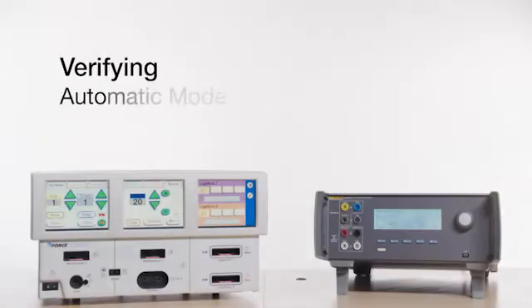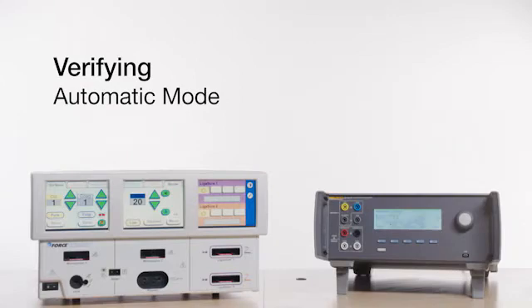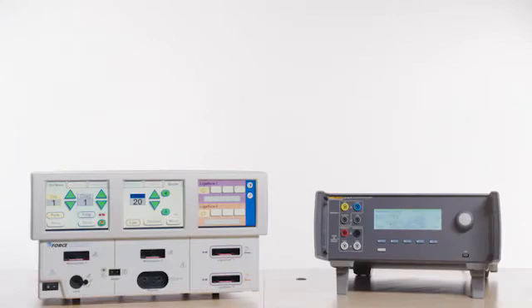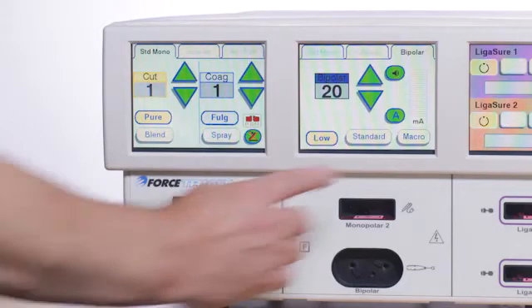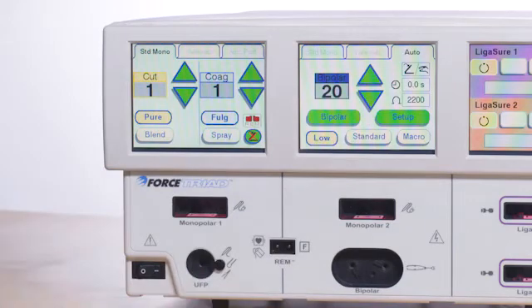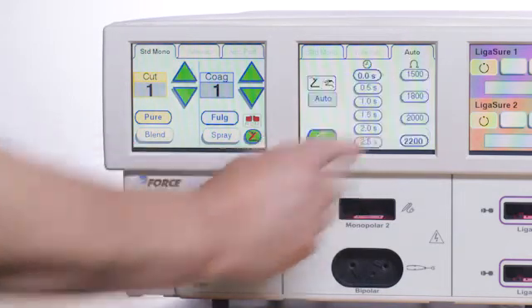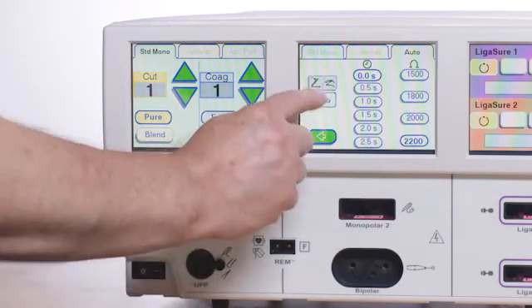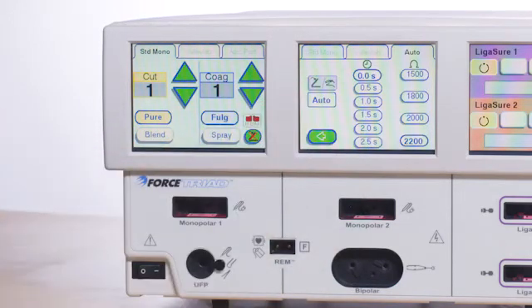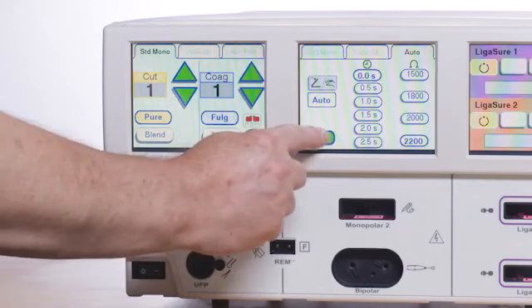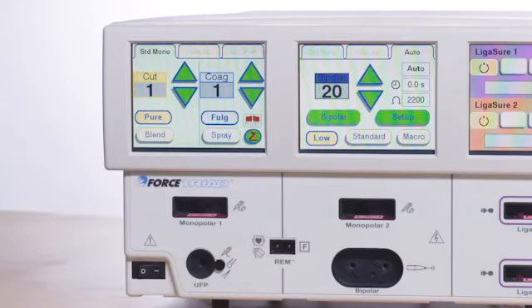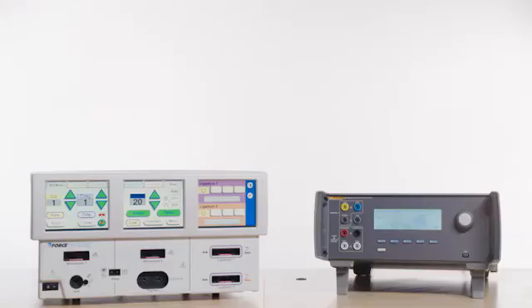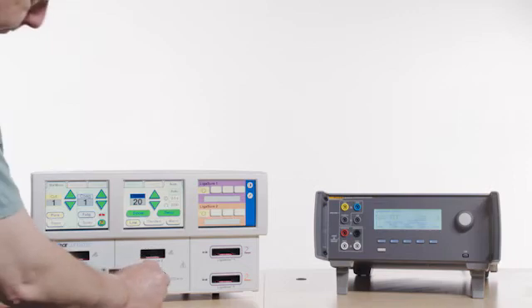Press F3 on the QAES3. Remove all test leads. Verifying automatic mode: from the bipolar tab on the Force Triad, press the A button and then the Setup button. Press the auto button. Press the back button once to go to the auto bipolar screen.